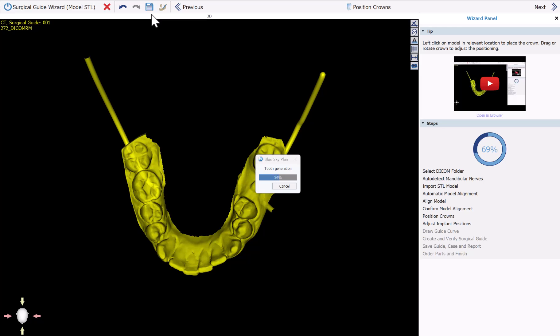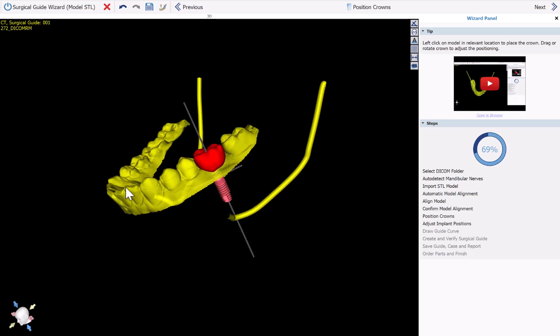As you can see, we have pretty much every step in the wizard process flow automated — you just go ahead and click through Next, Next, Next, confirming each step. The wizard flow also has the automatic surgical guide curve generation. If you want more control and want to do things manually, instead of going to the wizard simply select Normal or Advanced, and you can manually use the different tools — even the automated tools — controlling which are used when, to trim and plan your case.